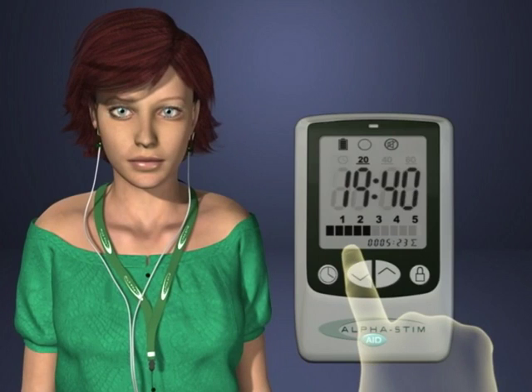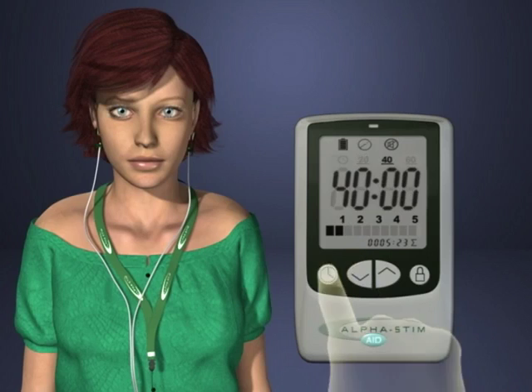For people who have a history of experiencing vertigo, which means dizziness, such as motion sickness, treat at a current setting of 100 microamperes for one hour or more to prevent residual vertigo after treatment.